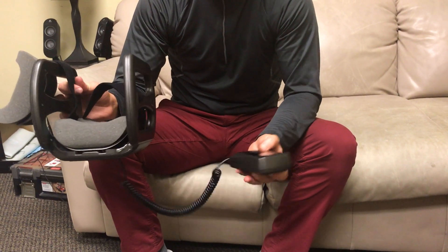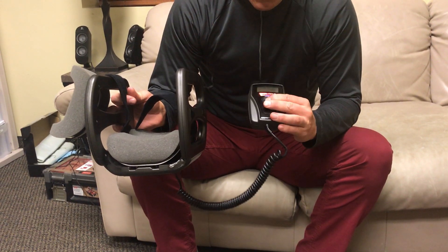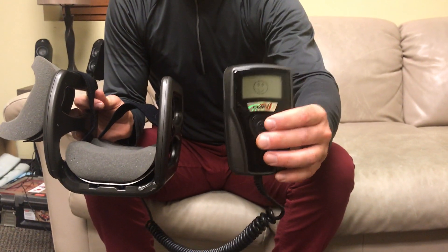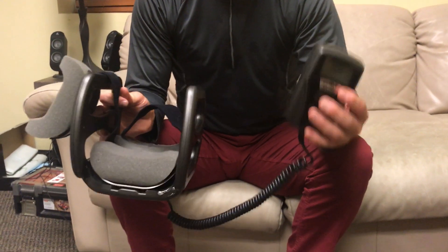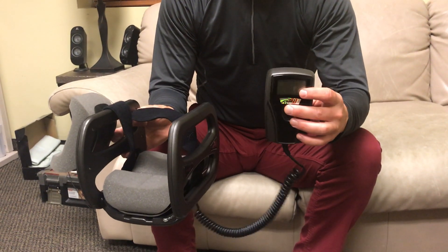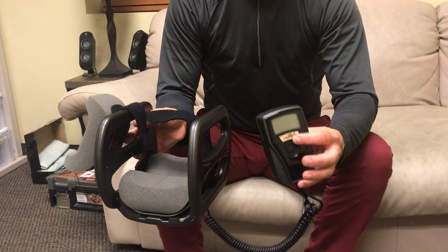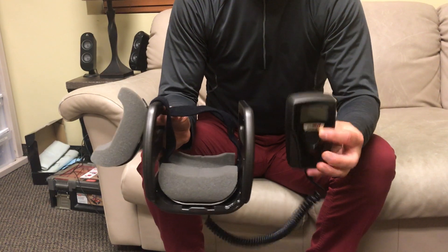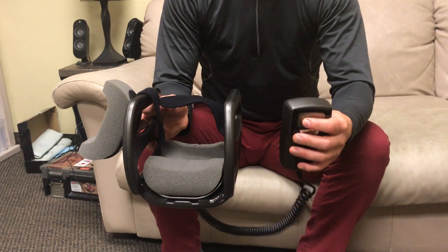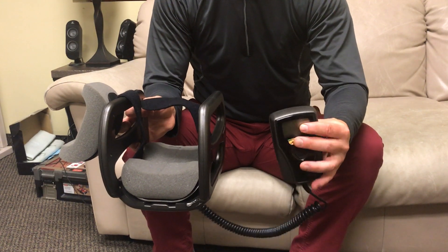You have the dual coil system and your controller. When you press this button on the controller, you'll see 089-270. There's a little smiley face there because it means it's out of juice — it's been utilized. After 270 uses, or roughly nine months, it will stop working. It's a one-use medical device, and it's been used 89 times out of the available 270 days.